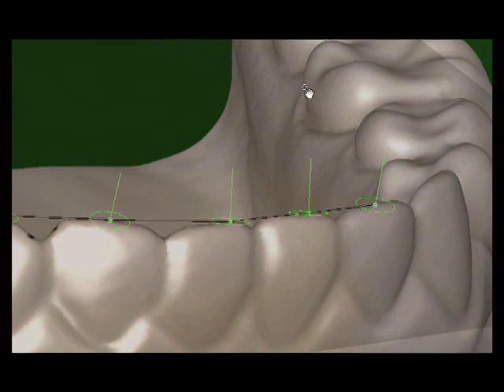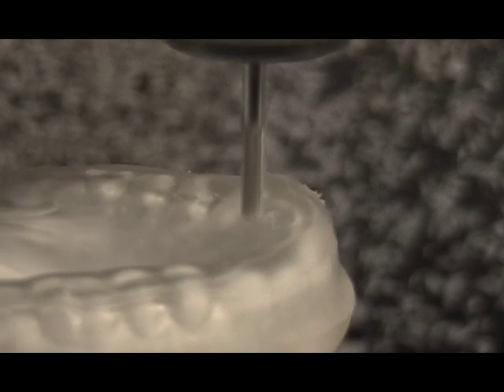High-speed machining provides an accurate and smooth splint surface. The process includes scanning, articulation, splint design, and milling.